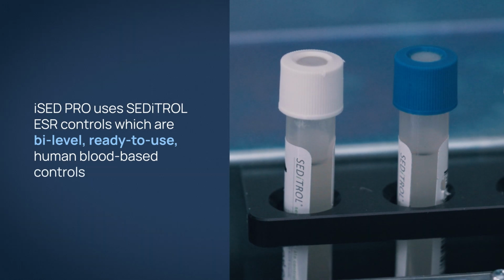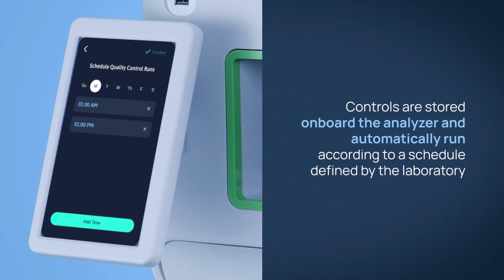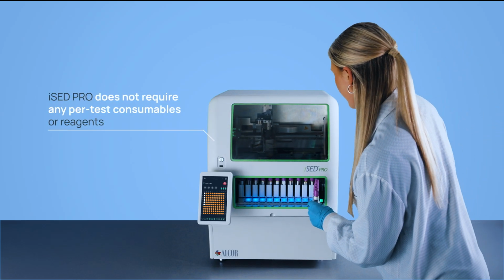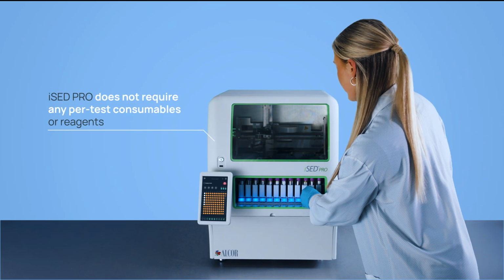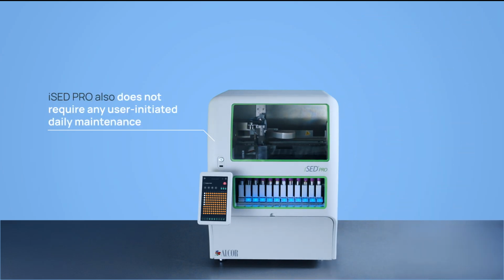iSED PRO uses Seditrol ESR controls, which are bi-level, ready-to-use human blood-based controls. Controls are stored on board the analyzer and automatically run according to a schedule defined by the laboratory. iSED PRO does not require any per-test consumables or reagents. iSED PRO also does not require any user-initiated daily maintenance.